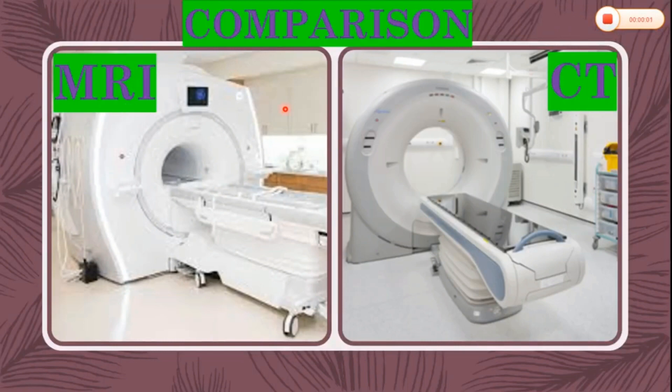Let's compare an MRI with a CT. CT uses radiation to take images. MRI uses only magnets, hence there is no radiation exposure. Secondly, MRI takes at least 30 minutes, hence MRI is a longer study. A CT scan is very fast, needing only 5 minutes. Thirdly, there are no moving mechanisms in MRI, just changing currents and magnetic fields. In a CT scan, the patient bed moves slowly through the gantry. MRI is more expensive than CT. Also, there is risk of increased body temperature during long MRIs. Moreover, there are loud noises from the machine, hence there is anxiety due to being in the enclosed space of the machine for claustrophobics.